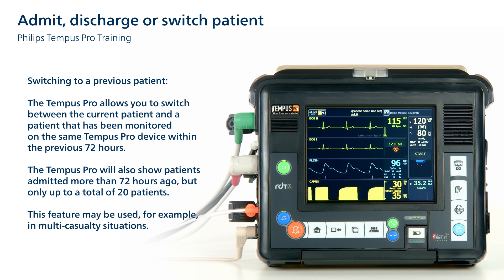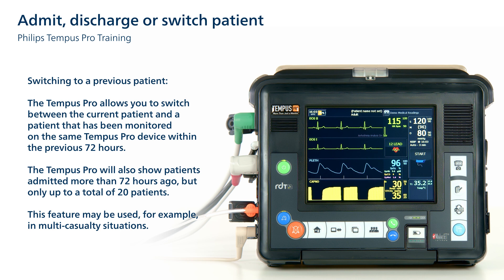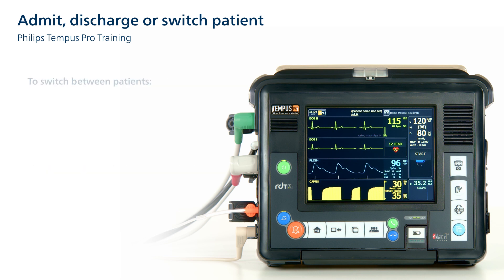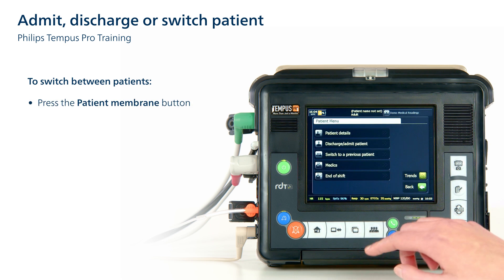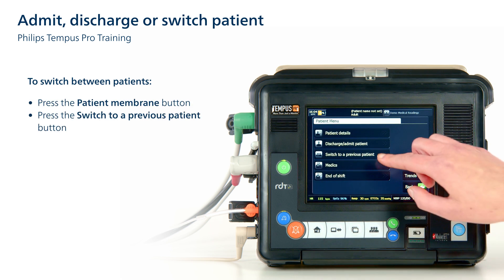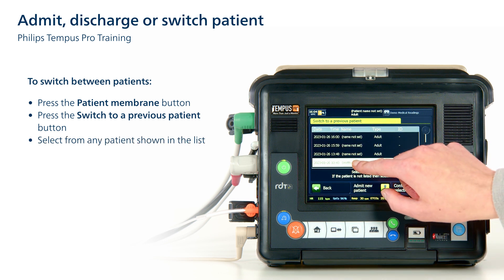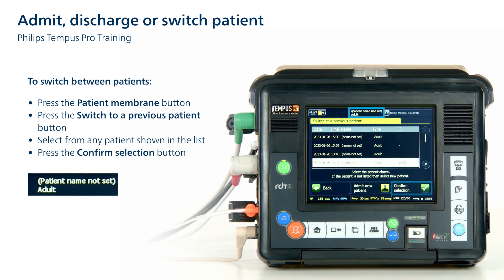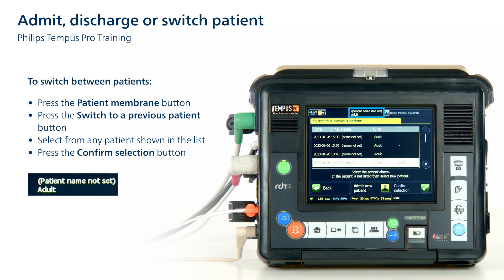This feature may be used, for example, in multi-casualty situations. To switch between patients, press the Switch to a Previous Patient button and select from any patient shown in the list. If no patients are shown, then there are no records to choose from.